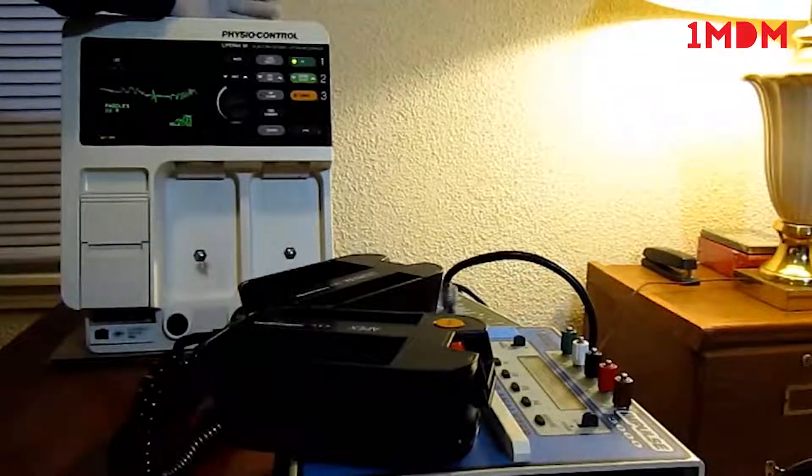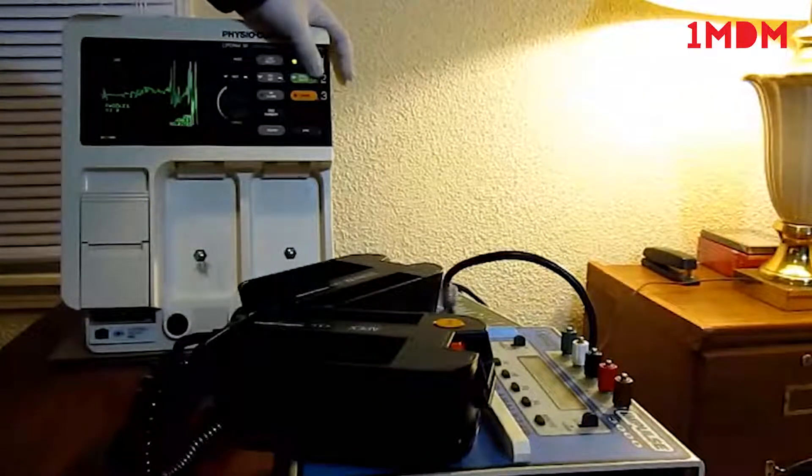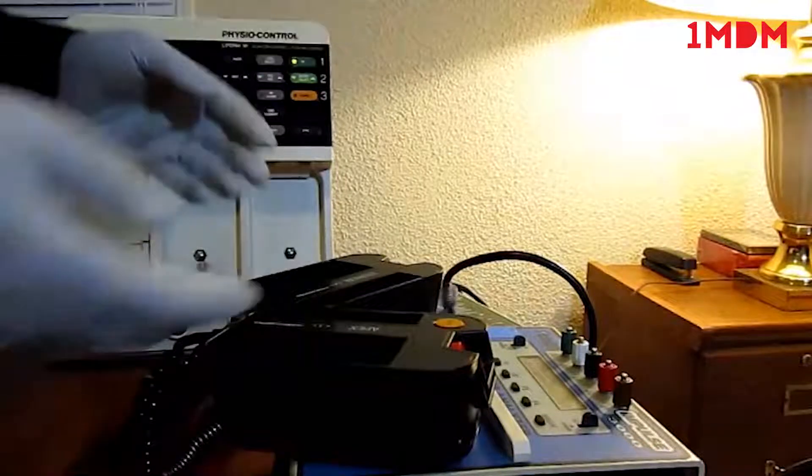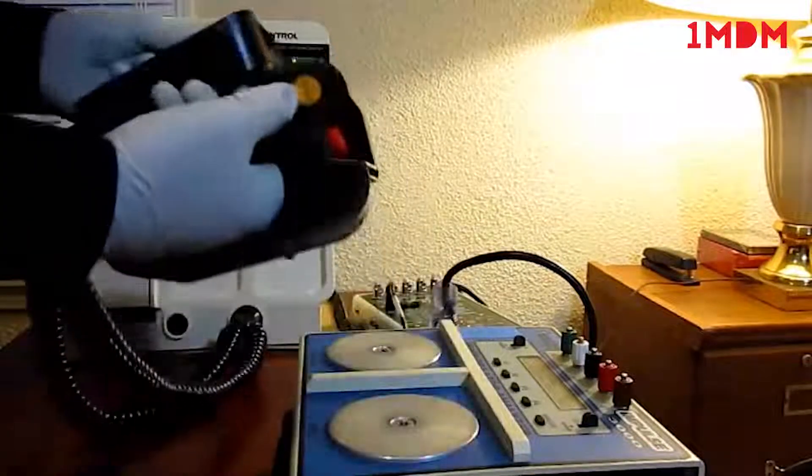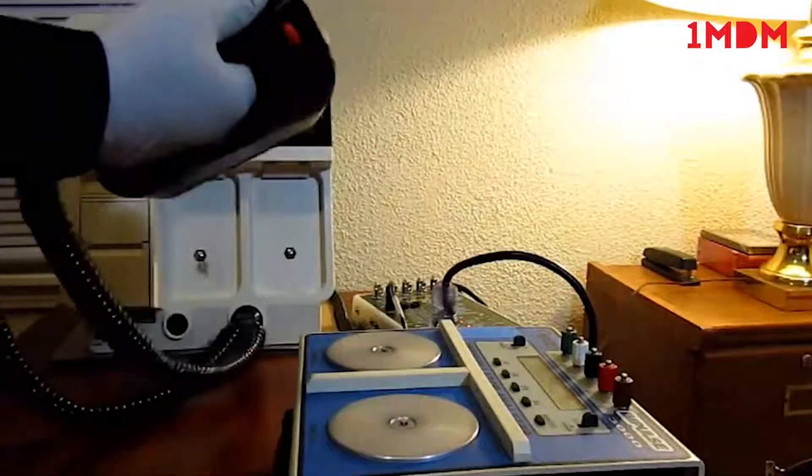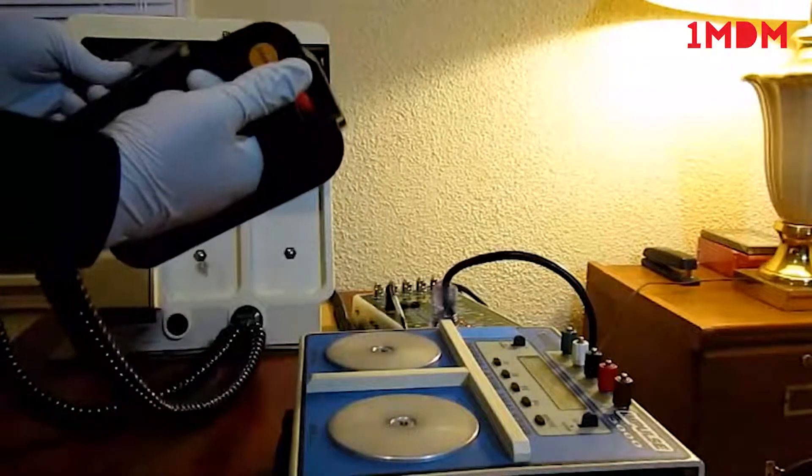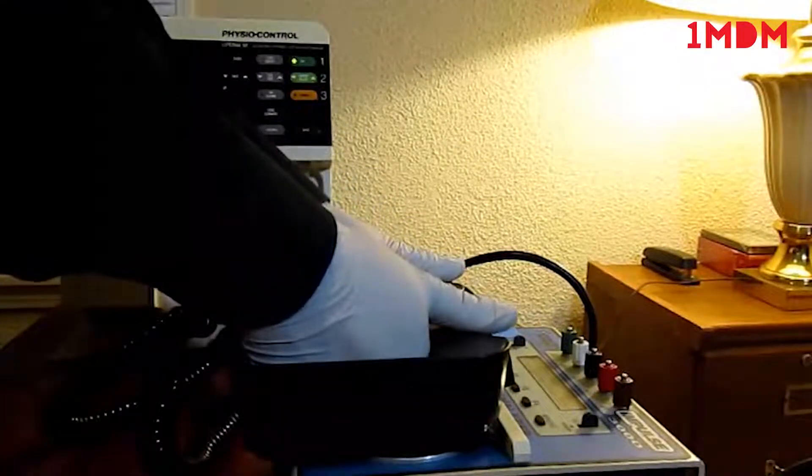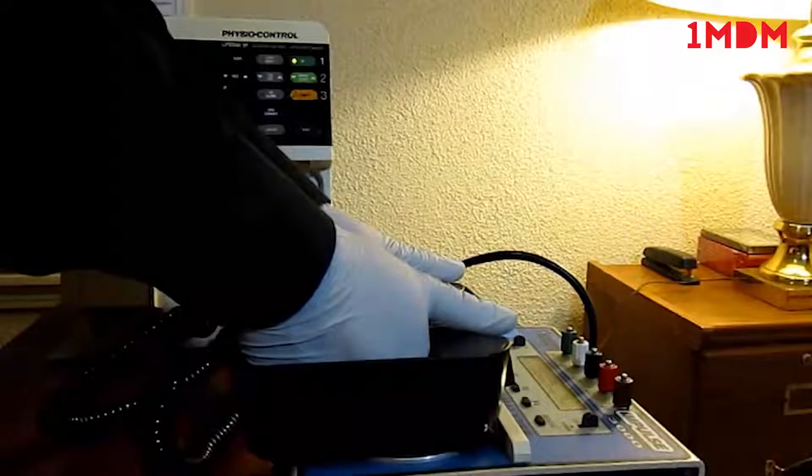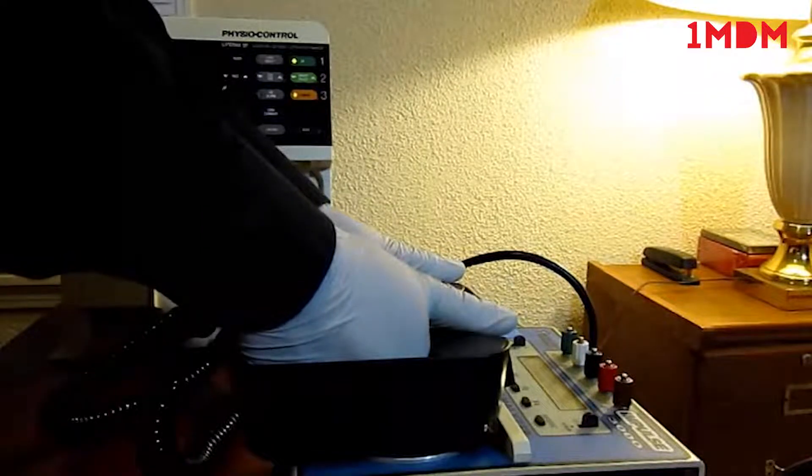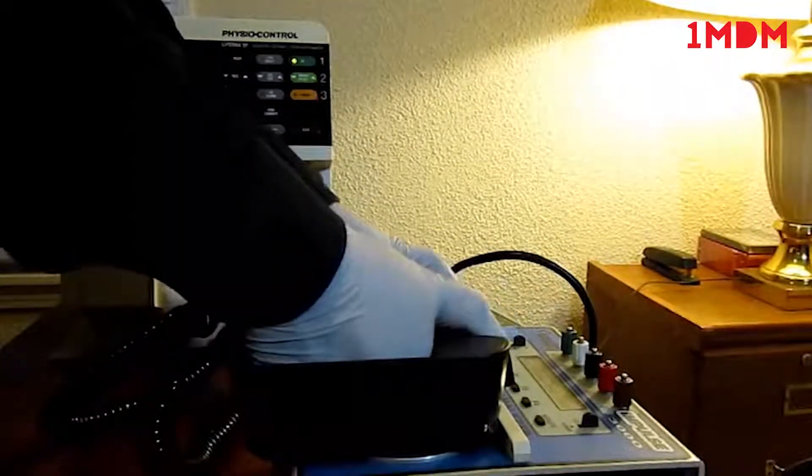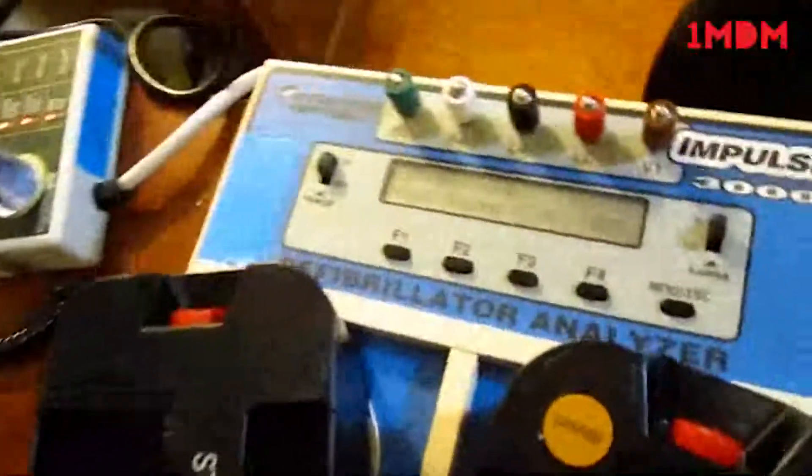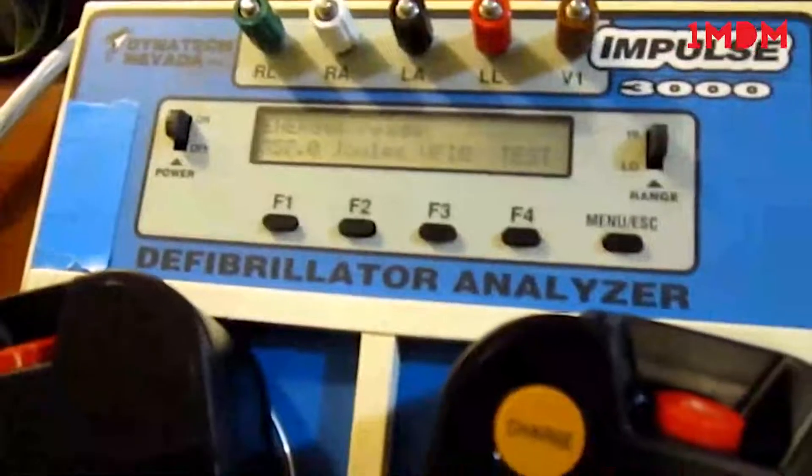Now we're going to do the output test at different energy levels. First we're going to do 360 joules, which is the highest, and we're going to use our paddles. We're going to hit charge. The output that we got is 357 joules.